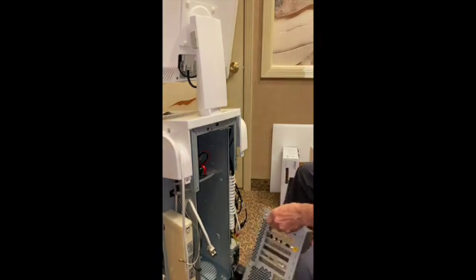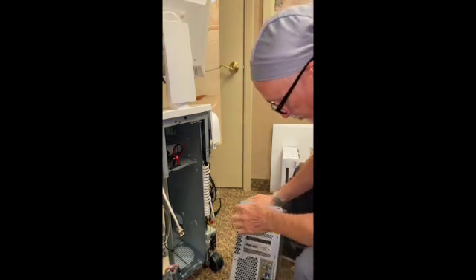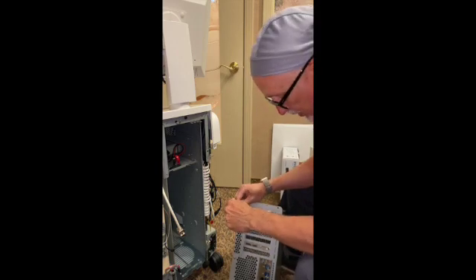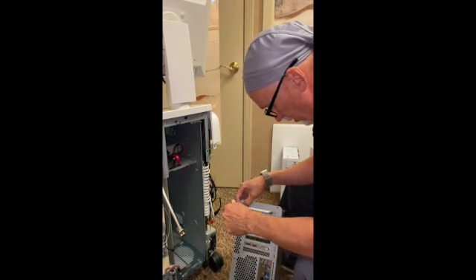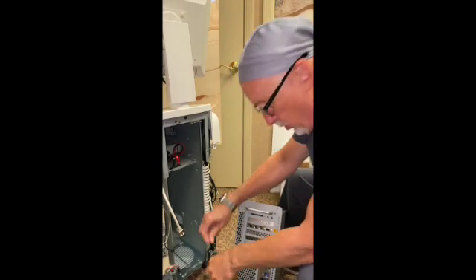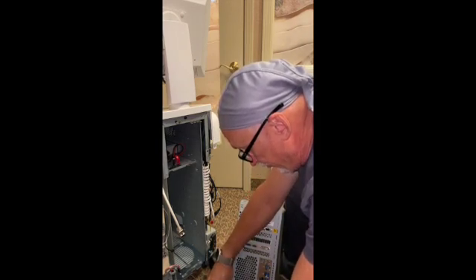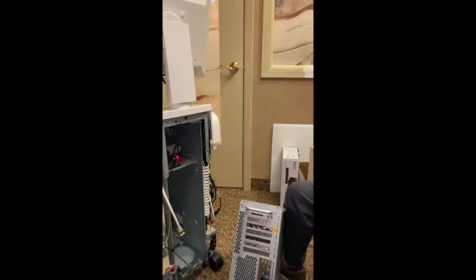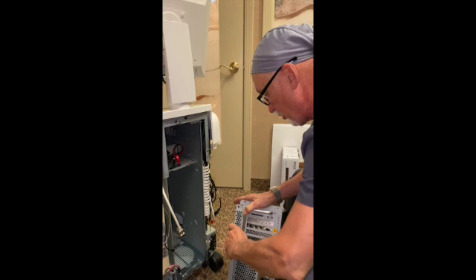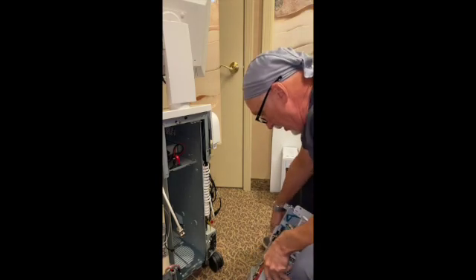And that's how you get inside your CEREC unit. Down below there are some filter things that we change periodically in these units. To get inside of this unit here, these three screws are Phillips head — that's what this screwdriver was for. These screws are different than the other screws you've been taking out of the chassis. Just undo them, set them aside, and then you'll have access inside.